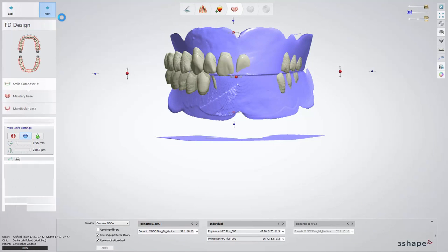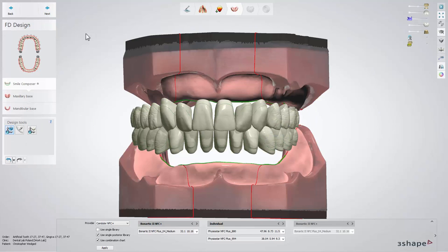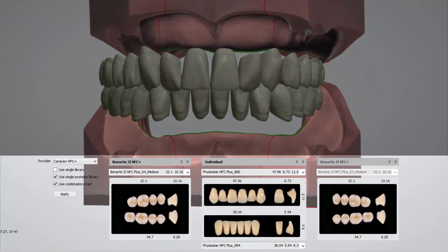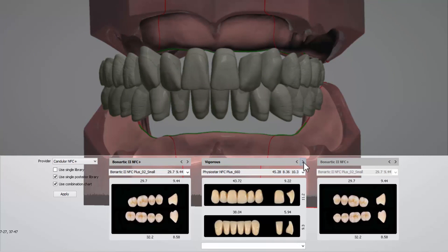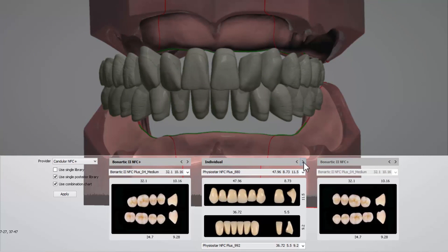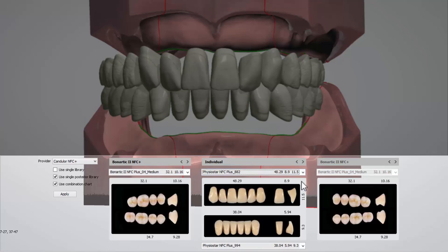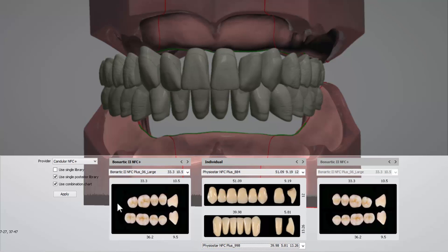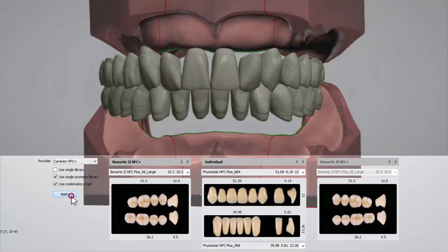Further on is the FD design step. As you can see, a default setup of the teeth is already made by the software. On the bottom of the page you have a big view showing the preview from teeth libraries. We have different libraries and different styles here, from which you can choose the one you prefer. For each of the libraries you have a proposition for a different style, with groups of teeth either for an upper or a lower jaw. After you choose the library you prefer, click the Apply button to save the changes.